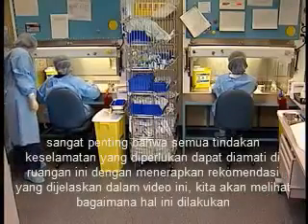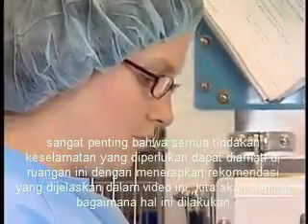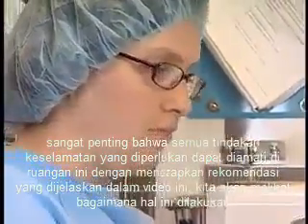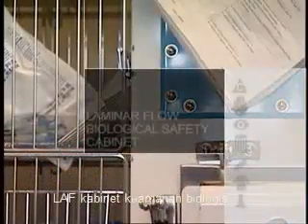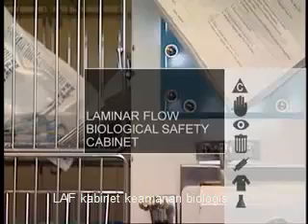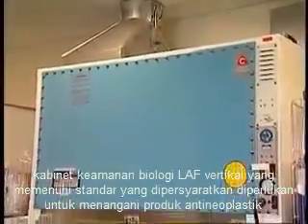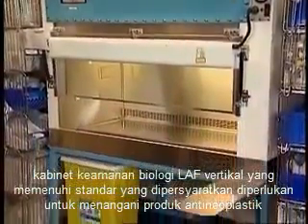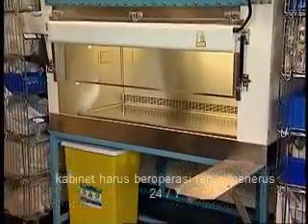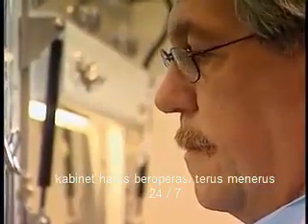It is imperative that all necessary safety measures be observed in this room. By applying the recommendations described in this video, we will see how this is accomplished. A Class 2 vertical laminar airflow biological safety cabinet that meets required standards is necessary for handling antineoplastic products. The cabinet must be in operation continuously, 24 hours a day, 7 days a week.